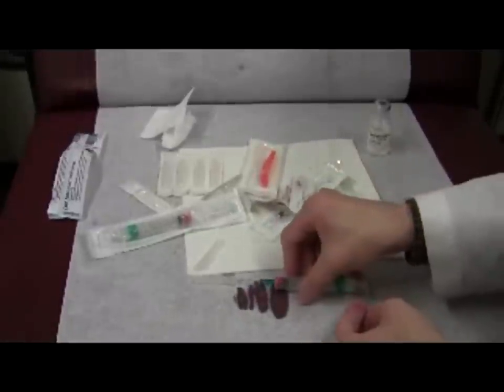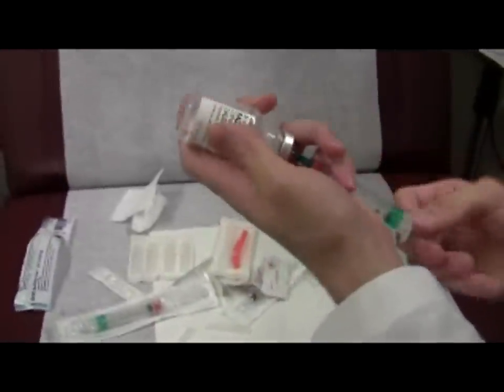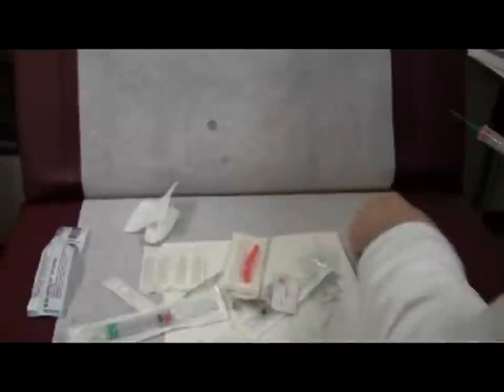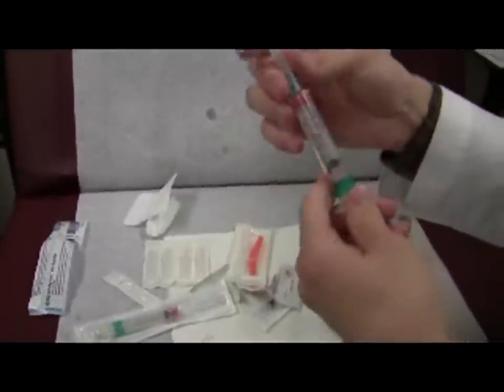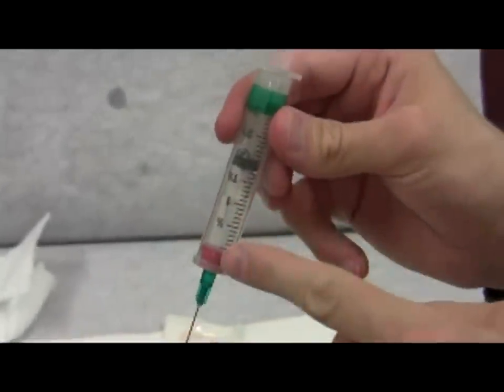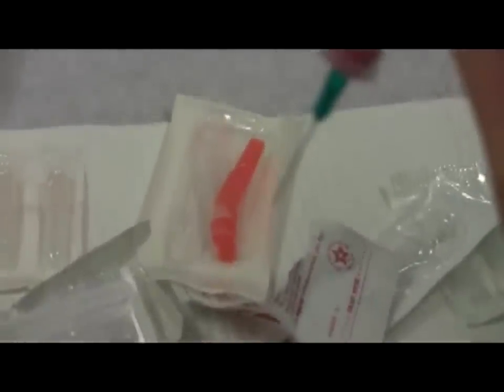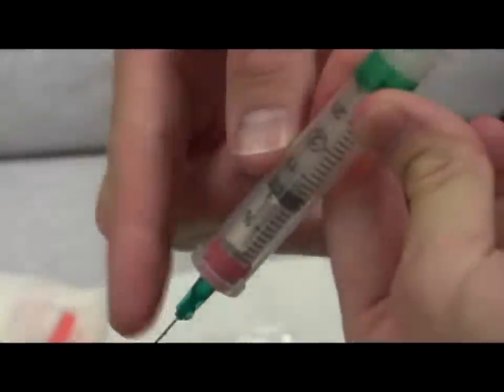If bubbles remain in the syringe while you're injecting, it is typically not dangerous in terms of injecting a small amount of air into the skin or muscle. However, most injections are done with the needle pointing toward the floor such that bubbles move to the plunger side. This puts pressure on the liquid such that after you finish pressing the plunger, additional drops will continue to express from the needle. This is especially important for things like Botox, where every drop costs a few dollars — getting air out means the flow completely stops when you stop pressing, with no extra liquid pushed out.